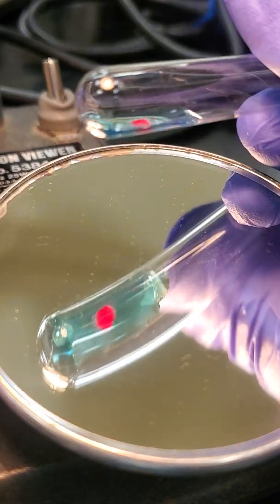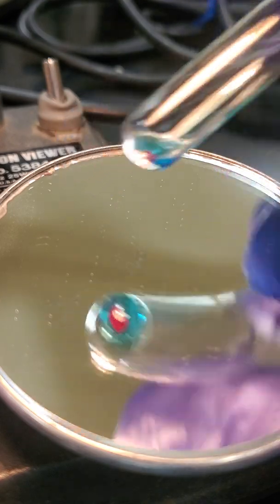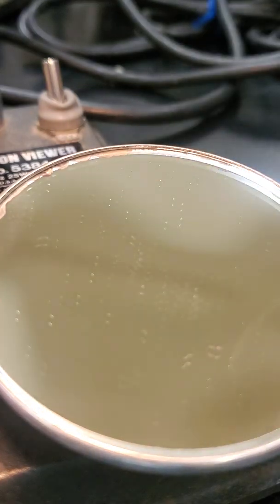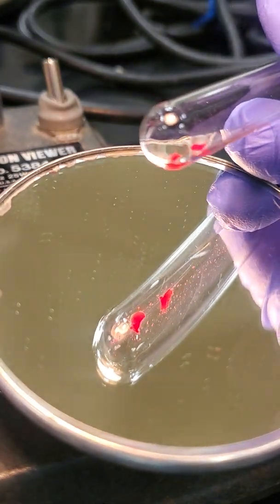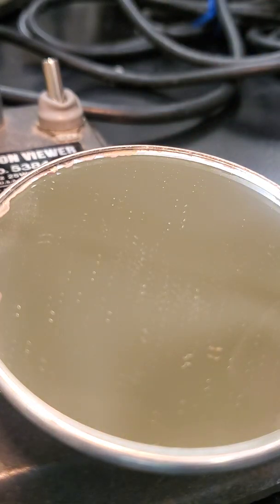Okay, and then unknown number 7, our forward. And this one, we're going to have to do something a little extra special. So it's our A tube, our B tube, and our D tube. So for this patient, all of our forward reactions are positive.